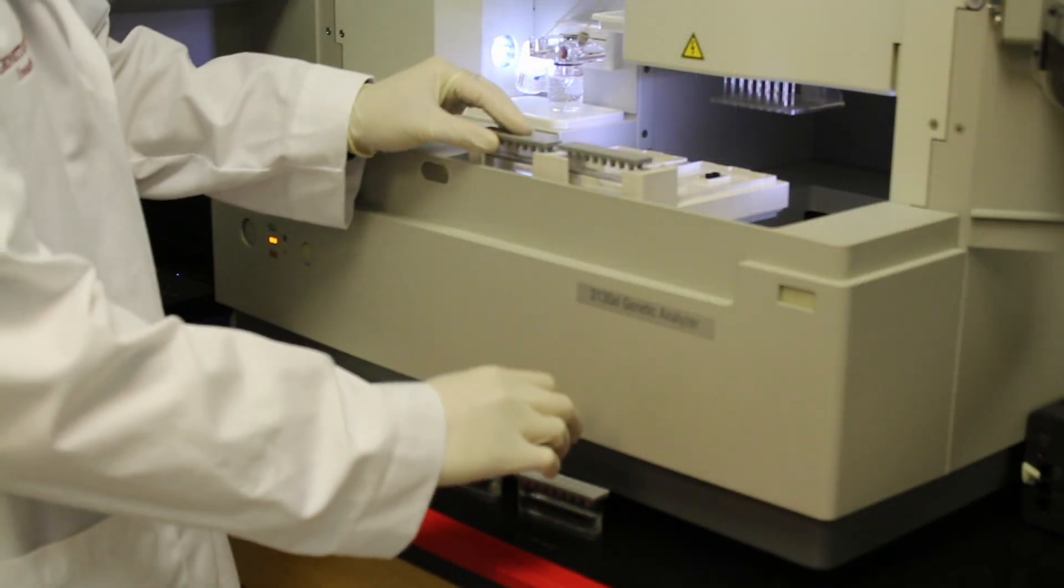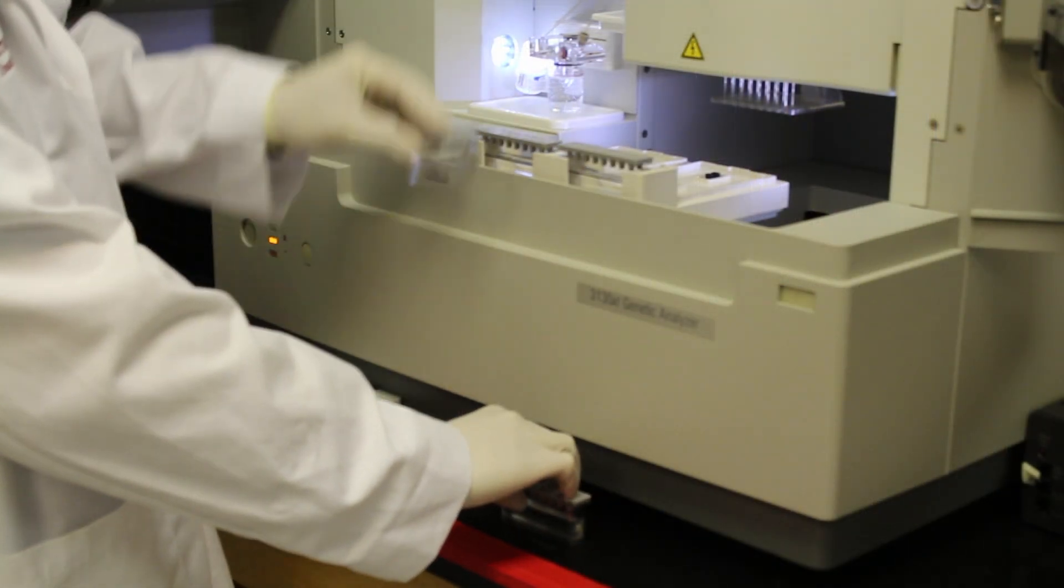GIVF is also a leader in designing patient-specific tests for most of the known inherited single gene disorders, such as cystic fibrosis.